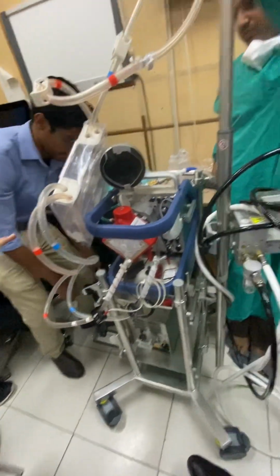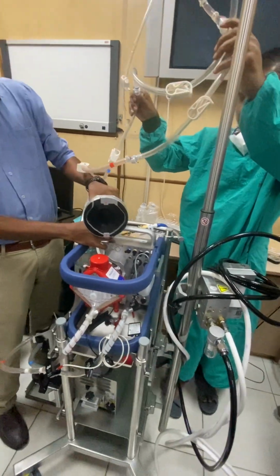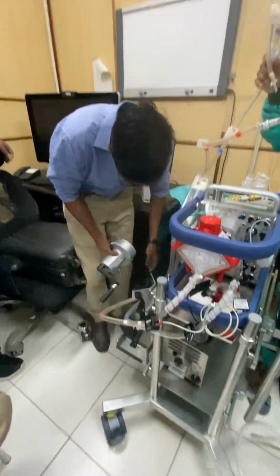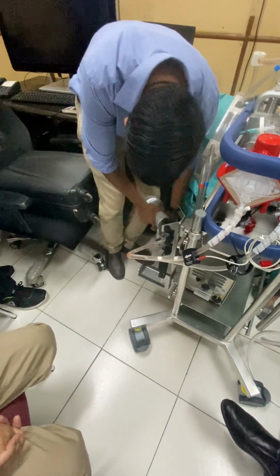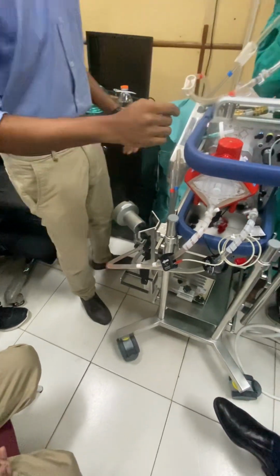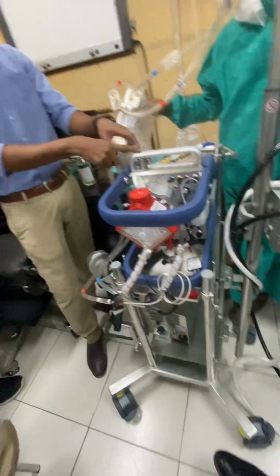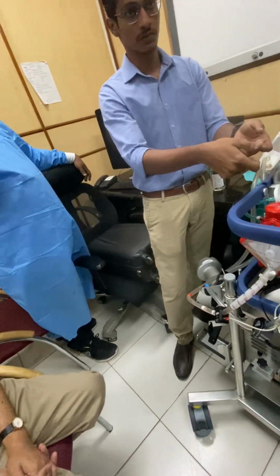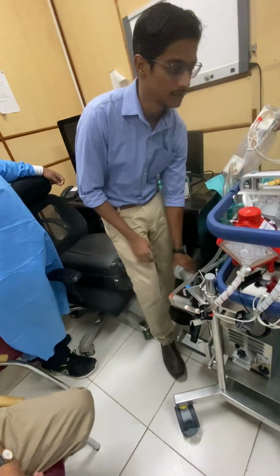This is also part of the circuit, or is this just additional loops? Actually, yeah, this is basically a port where we use a hand crank during transport. Other than that, we can keep it aside, like elbow control.